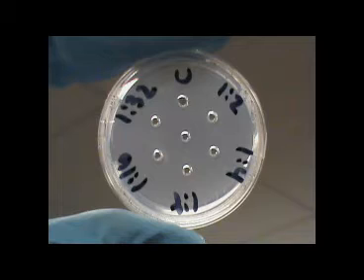A titer plate is a small Petri plate with agar inside. There are no nutrients or supplements in the agar. There should be seven wells in the plate. The center well will house the antigen, and the other wells will be used for patient samples.